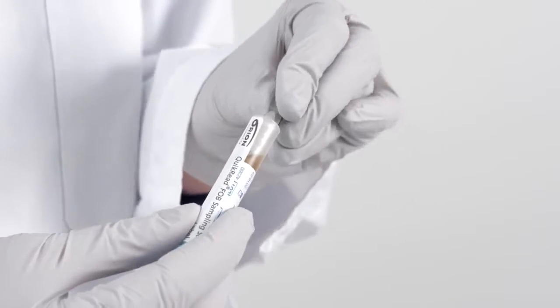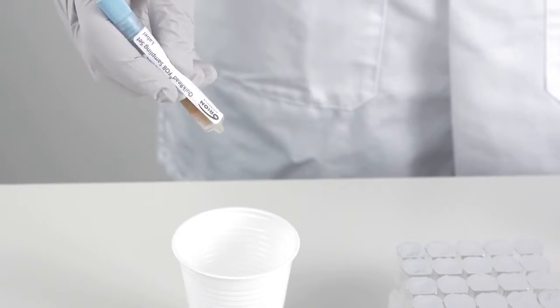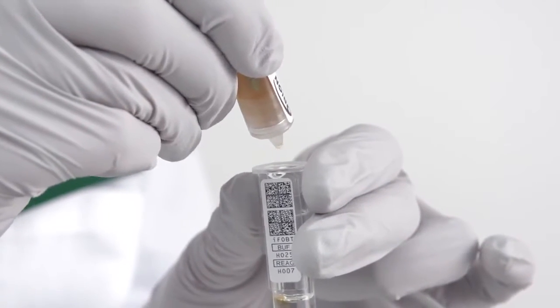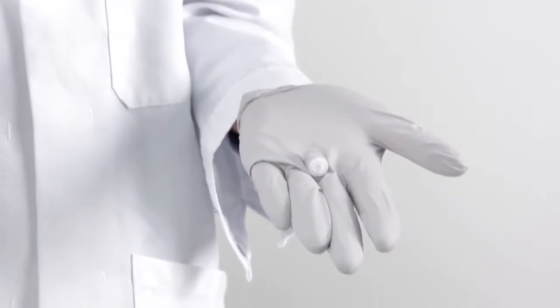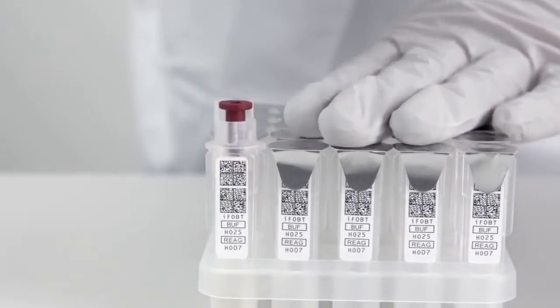Break the tip of the sampling vial. Discard the first three drops. Then dispense three drops into the cuvette. Open the tube with the reagent caps, take one cap out, and close the tube. Put the reagent cap tightly on the cuvette in the rack.